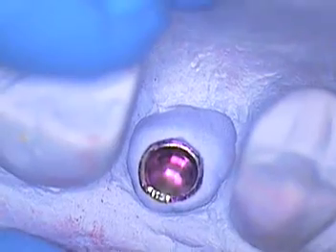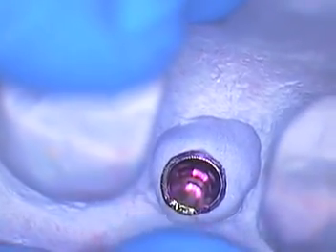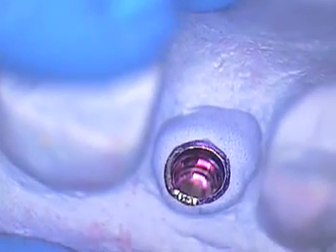I then proceeded to hollow further the internal aspect — and I'll just zoom in on this — the internal aspect of the solid model with a gold burr, a round gold burr. Slowly did that until finally we got this to seat.